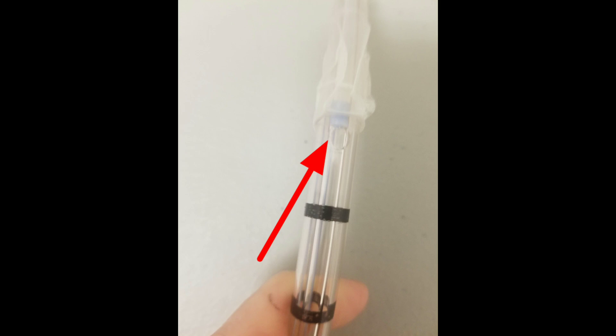So when are we deflating the cuff? We're deflating the cuff when repositioning an ET tube, when doing a leak test, and also when we're going to extubate or do a tube exchange on an endotracheal tube.